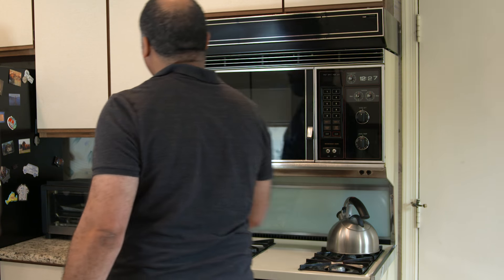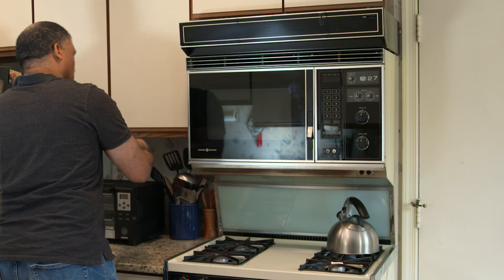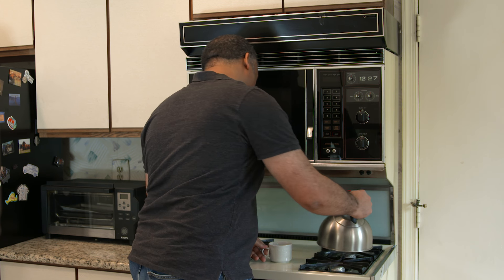It is important to get multiple readings in your usual environment. Multiple readings, rather than one single reading at your doctor's office, gives a pattern of readings to help your healthcare provider know if the food you're eating, exercise you're doing, or the medicines you're taking are working to keep your blood pressure at a healthy level.